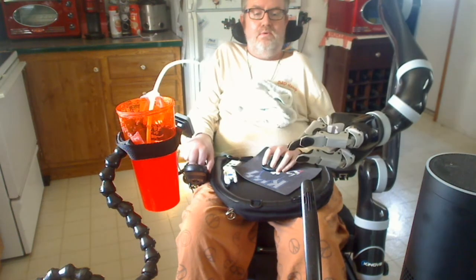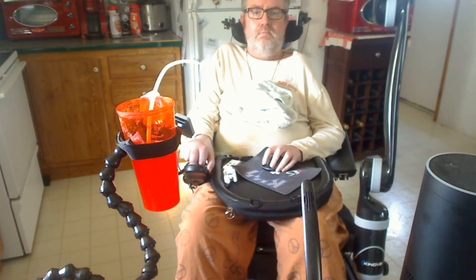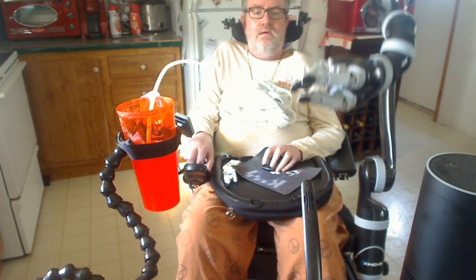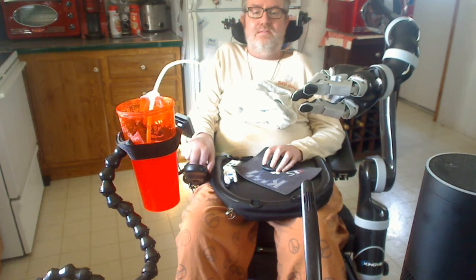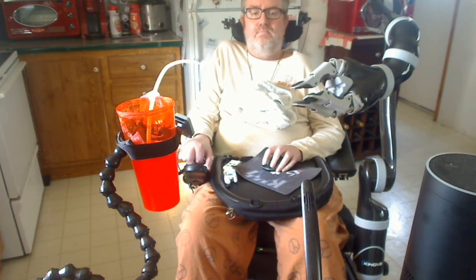We'll put it back in the home position and go to B1. In B1, it goes up and down — I can reach something off the floor in the down position. And then also it will rotate the wrist. That's what B1 does.